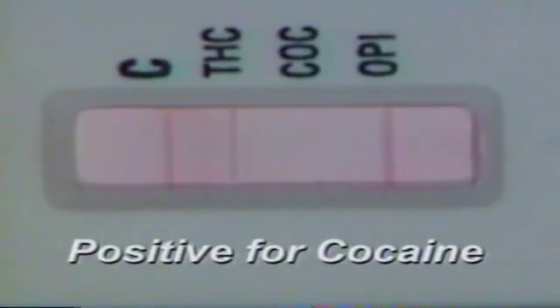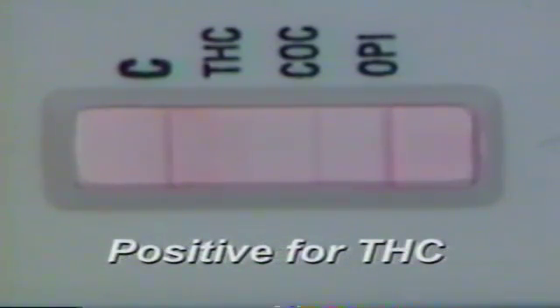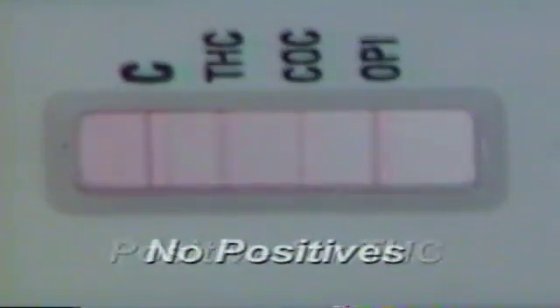It's important to keep in mind that the color and definition of the line may vary slightly. Oral screen results are qualitative, meaning they only produce positive or negative results. Variation in line intensity does not indicate a quantitative value for either positive or negative results. Please note these examples as your results may look similar. This indicates positive for cocaine. This positive for opiates. This positive for THC. And this sample shows no positives.